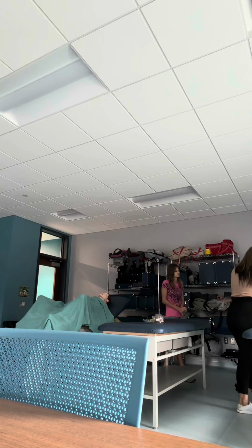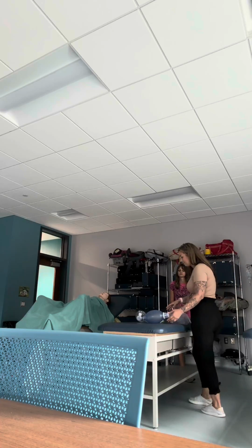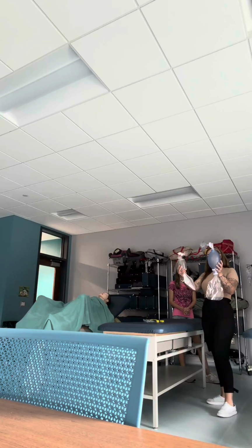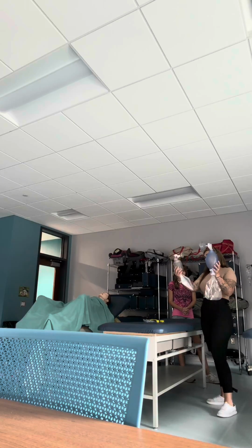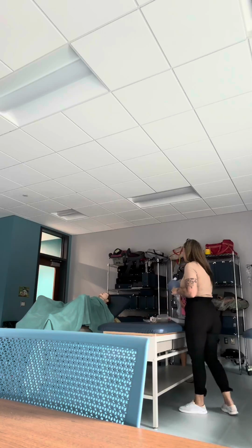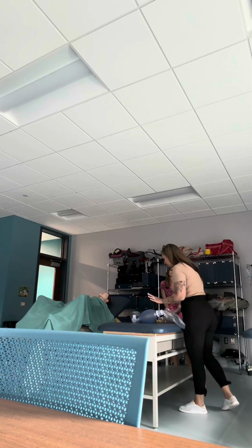Now, unfortunately, today I do not have a pediatric BVM. I have an infant and an adult. However, if you can see the size difference here, just imagine one being in between this size. Now, like I said before, there are different kinds of BVMs, right? We have our adult, our infant, but we have pediatric.